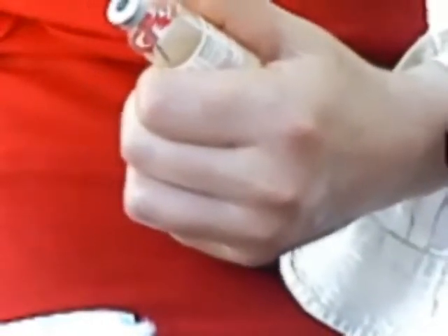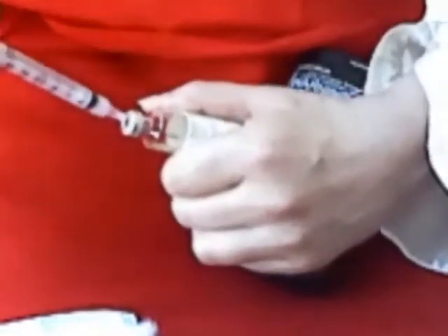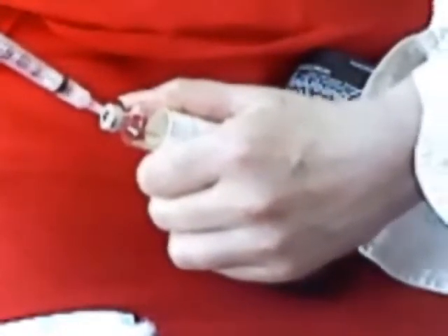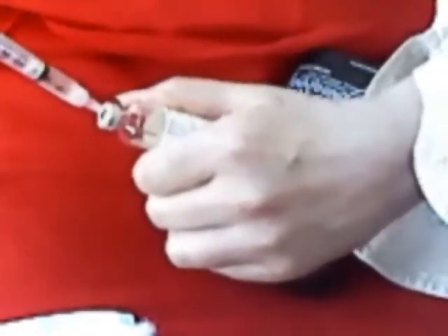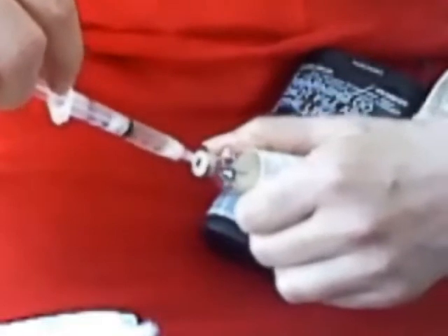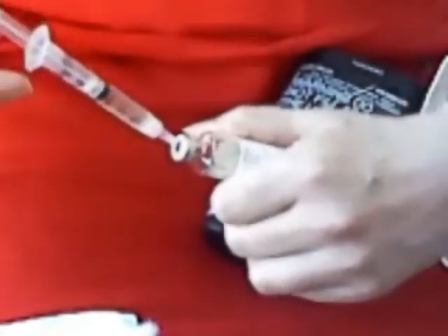Tilt the bottle a little bit, then press in and pull up. What I really want is about one-and-a-half milliliters. There's quite a lot of air bubbles, which is something I don't want, so I'm going to inject all that back in. Make sure the needle is in fluid, and pull it up — you see there's really not that many air bubbles. I want it to 1.5, so I'll just inject a little bit in.